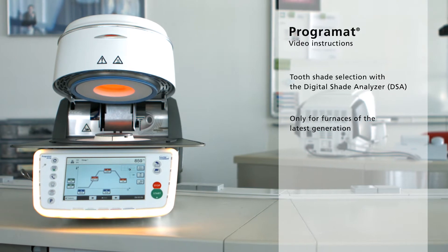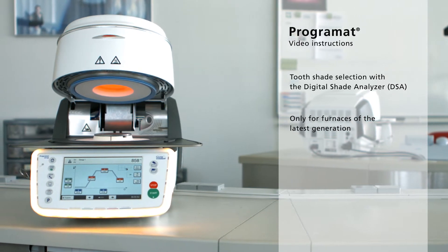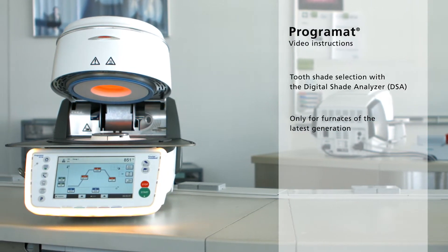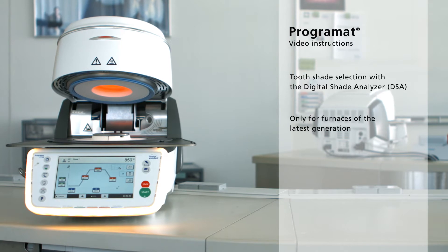The shade selection process consists of two parts: a clinical part and a technical part.